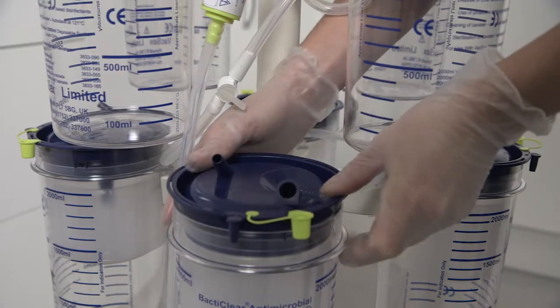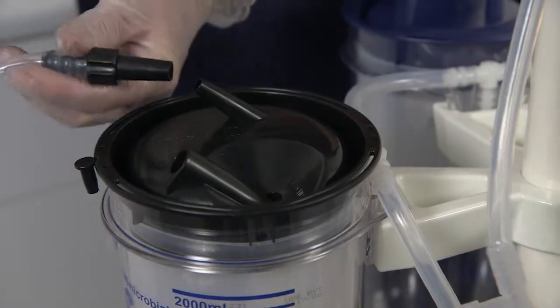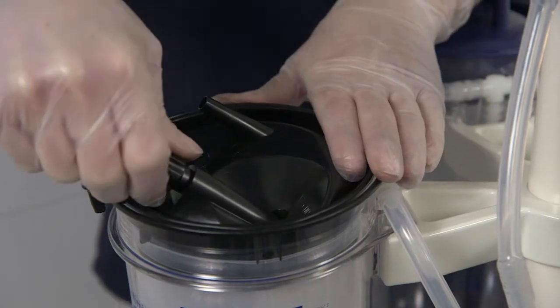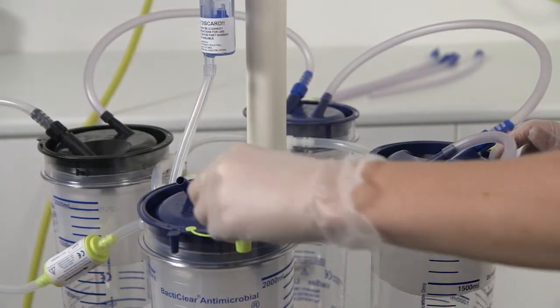Connect the black vacuum tapered connector to the black lid standard liner. Starting at the top mounted black lid liner and working round to the last blue liner connect the cascade tubing.